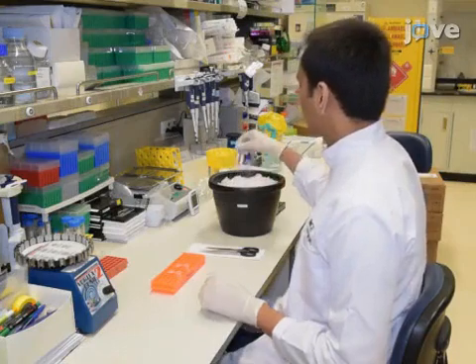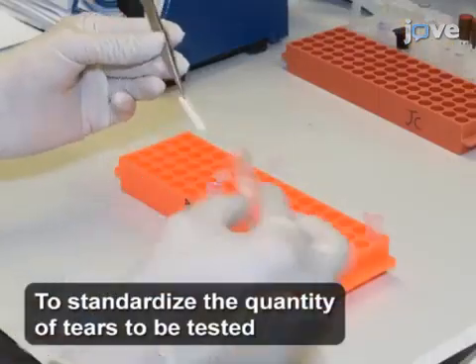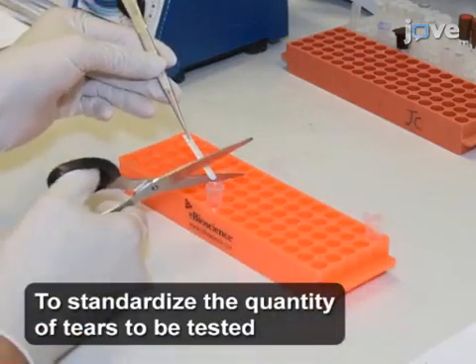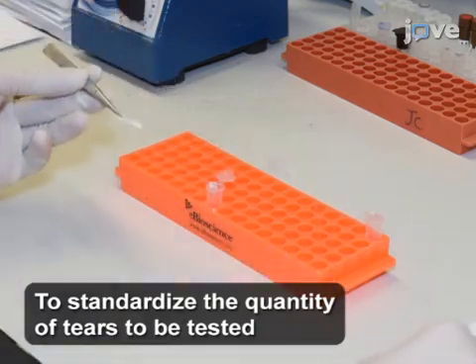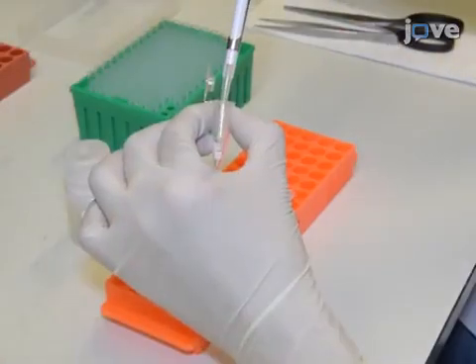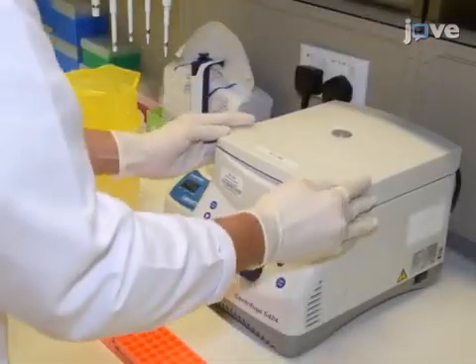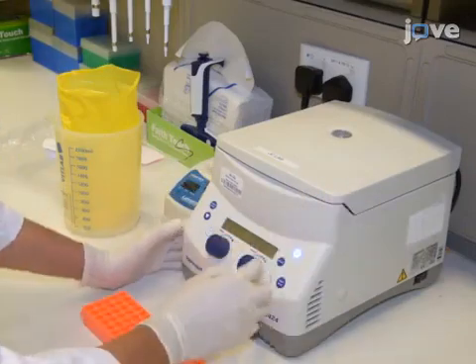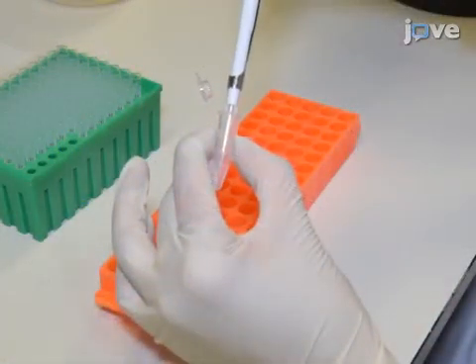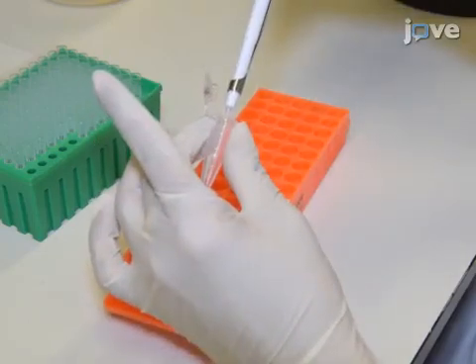After collecting tears from a subject according to the protocol, cut the tear flow strip to a length of 0.5 cm and place it in a sterile 1.5 ml microcentrifuge tube. Add 30 microliters of assay buffer and incubate the tube at room temperature for 5 minutes. Then centrifuge the tube at 14,000 times G for 1 minute. Transfer the supernatant into another 1.5 ml microcentrifuge tube and discard the strip.